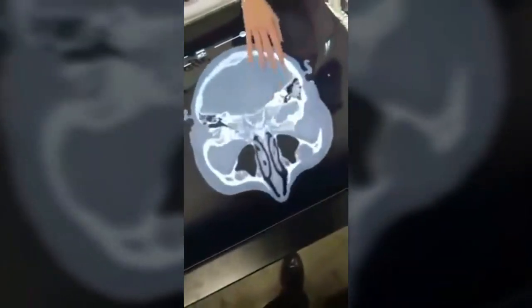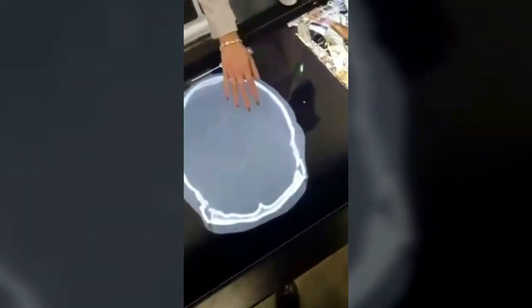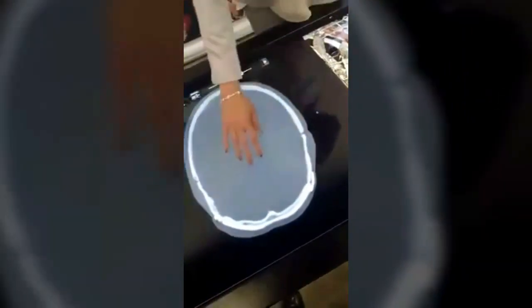Most interestingly, you can load in your own patient CT or MRI scan, and from there you can get a 3D model of what you're seeing. Here we have a post-operative scan of a patient with a brain aneurysm, and this is the actual CT that was provided. You can slide through the CT and see exactly where the clips were placed. It's more intuitive when you see in 3D where the clips were placed rather than just focusing on the CT alone.